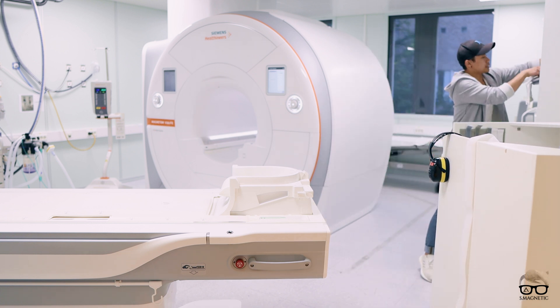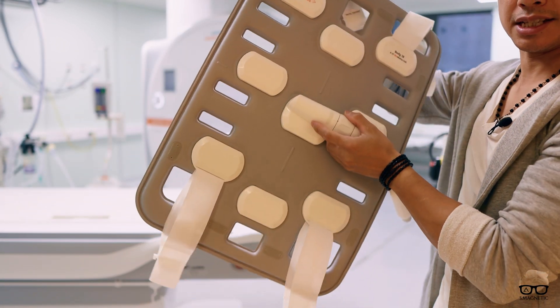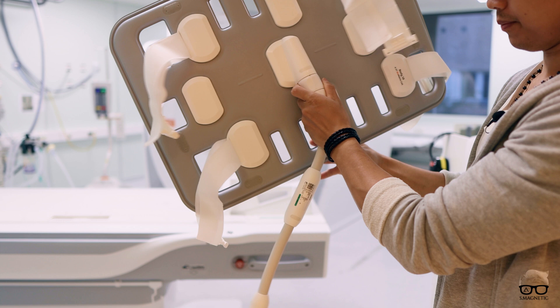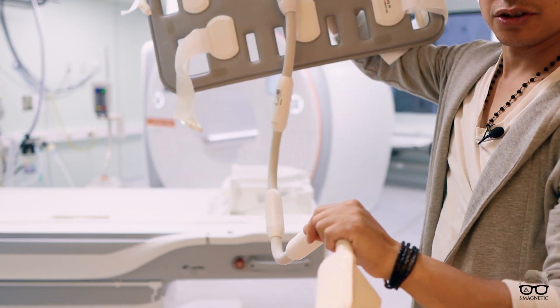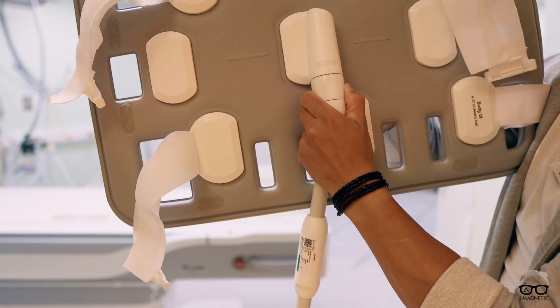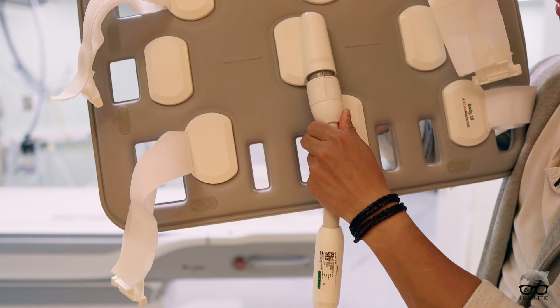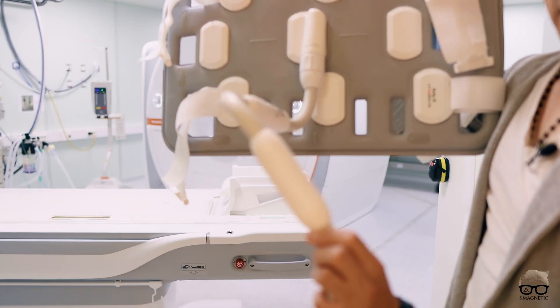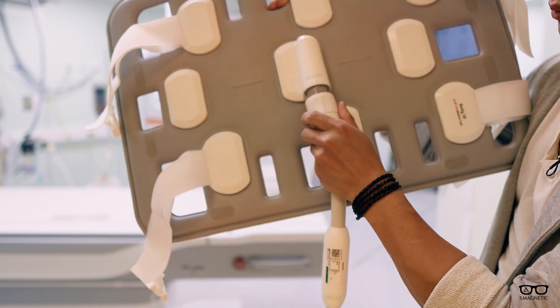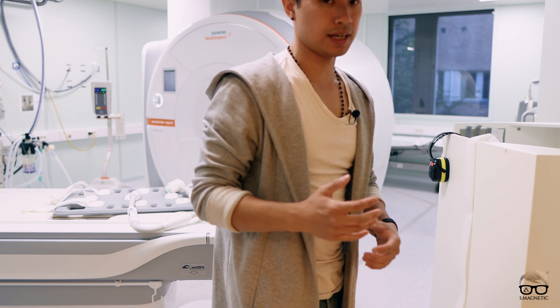Another very cool thing is this Bio Matrix Body 18 coil. It has an automatic ECG built inside it. What's very cool is this part — you can see the cable. This is the short cable, but you have the opportunity to swap it out and change it to a longer cable. It comes with two cables — for us it came with one short and one long — so we have the opportunity to be extremely flexible with the cable. We also got a lot of other coils: the head, wrist, and everything.